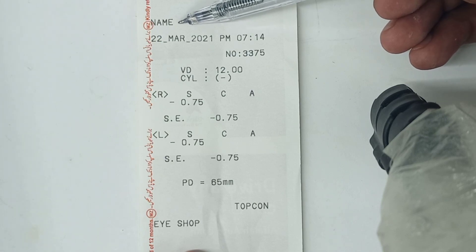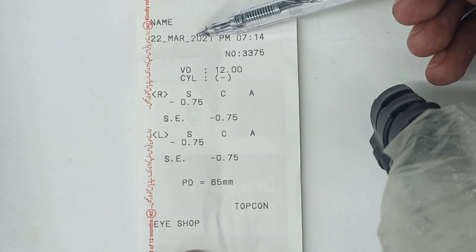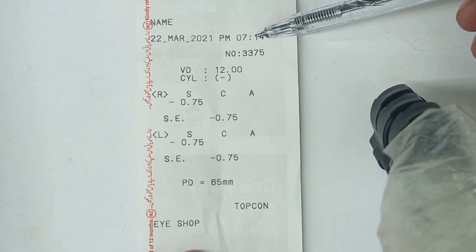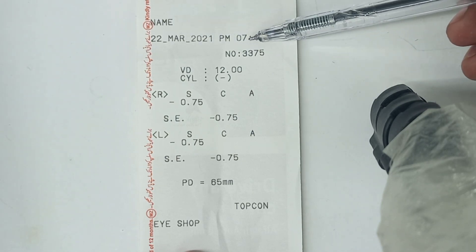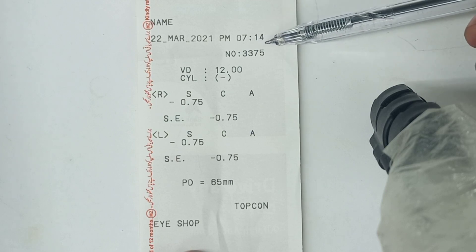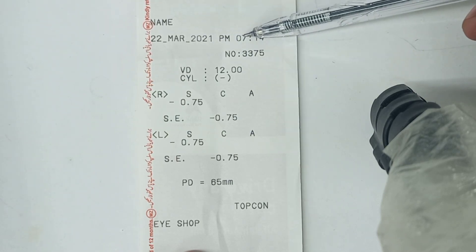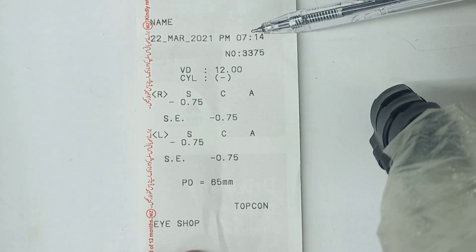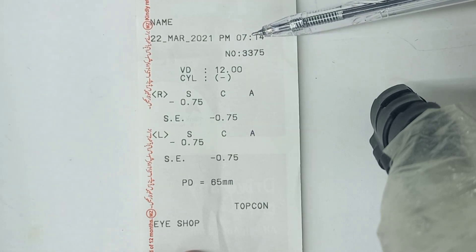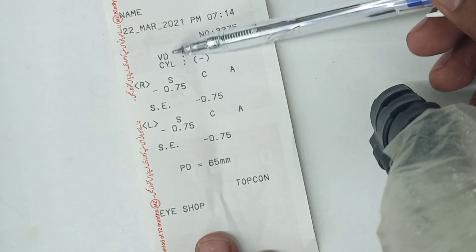First we have the section for the name of the patient, then the date and the time. The date is 22 March 2021 and the time is 7:14 PM. This date and time is very important for the follow-up of patients and further checkups. Next is the slip number.